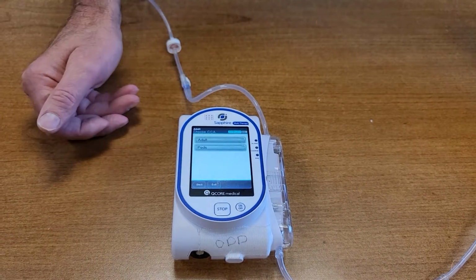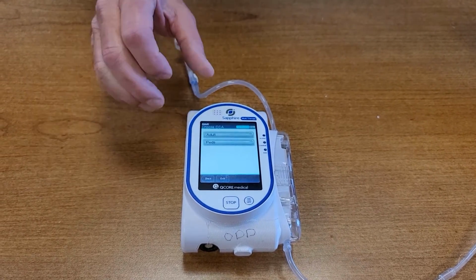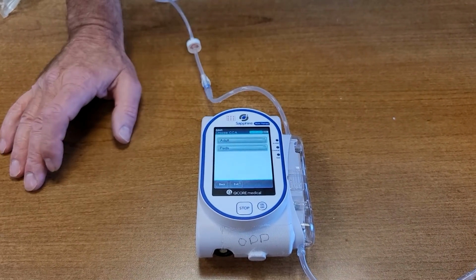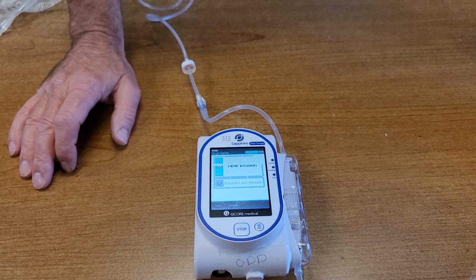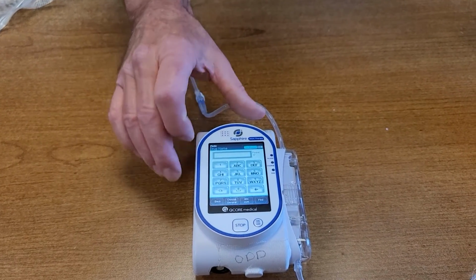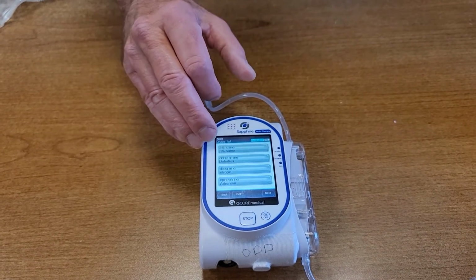But it can be done, because I know I've had people ask me, can you do that without turning the pump off? It is possible, but it is probably not practical. Whichever way you'd like to do it is perfectly fine. And then if I go into the peds mode, okay, and I hit new infusion, and the libraries are all whatever you want in the library. If it's in here, just find whatever letter you want. There's 3% in here.